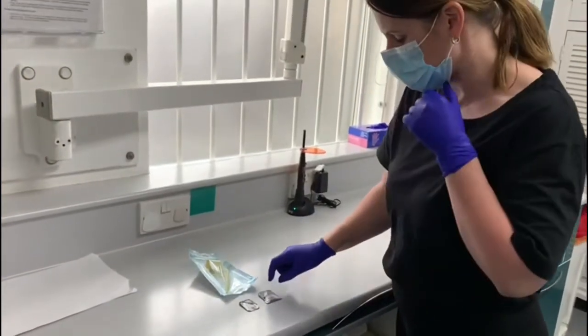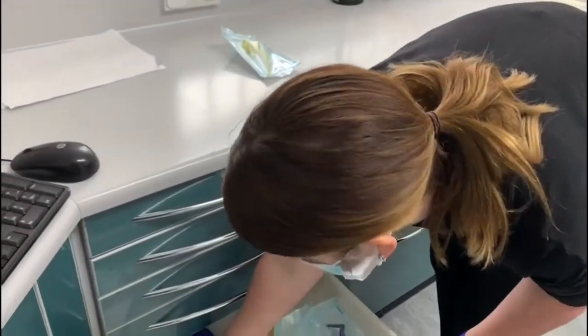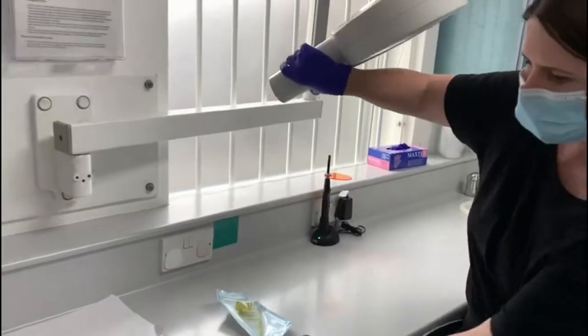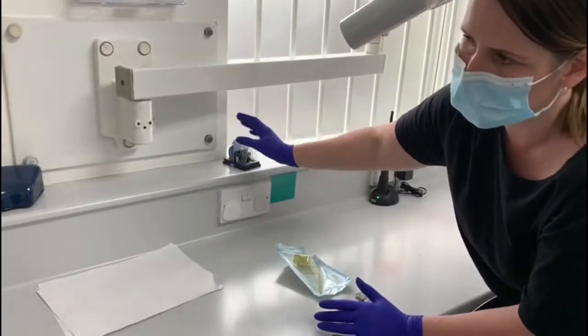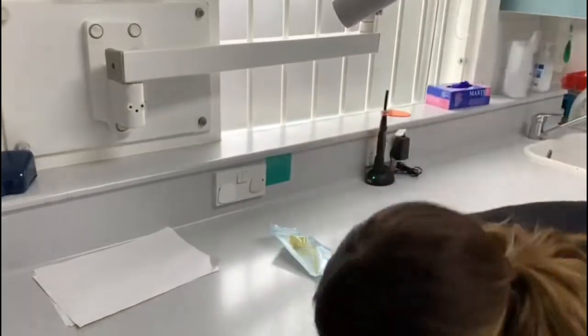This is digital processing of an x-ray film. Everything has to be kept in a cupboard out of the way of the collimator, which is here. If you left the sensor plate near the collimator, it can get exposed, which means you're overexposing the patient and the x-rays are not going to turn out as well. So keep these in a drawer out of the way of the collimator.